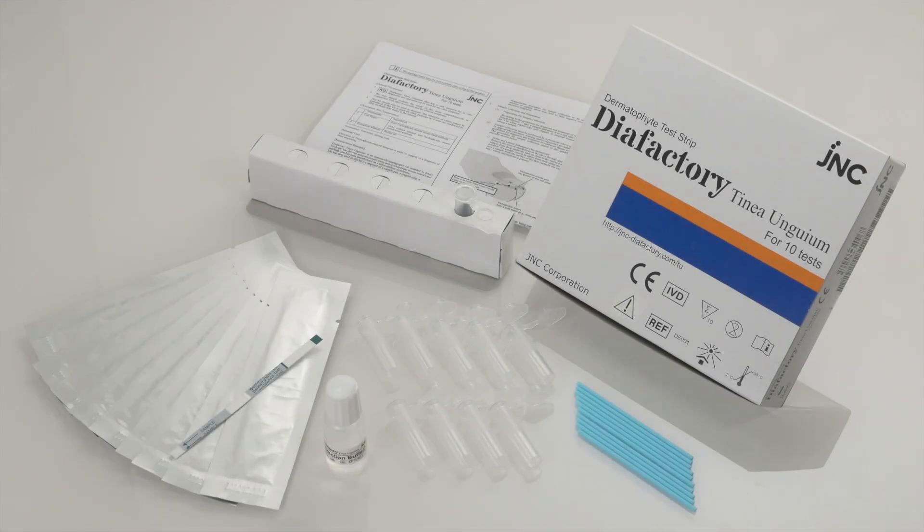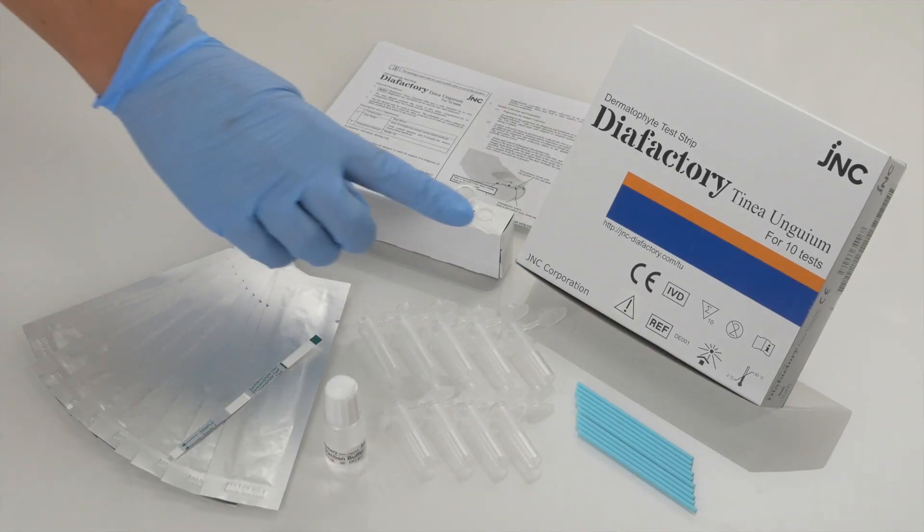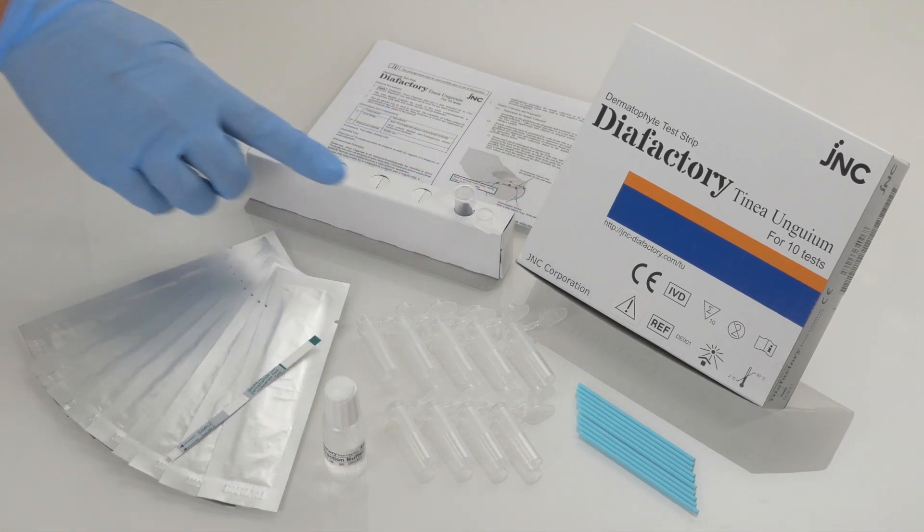Your Dermatophyte test strip kit comes in a box, and inside the box you'll find the instructions for use.